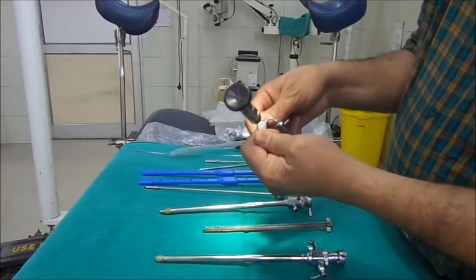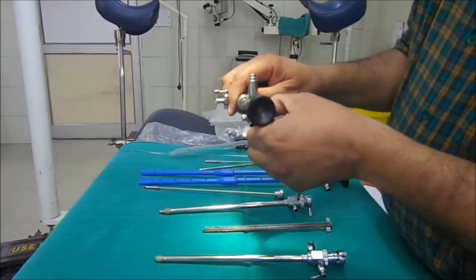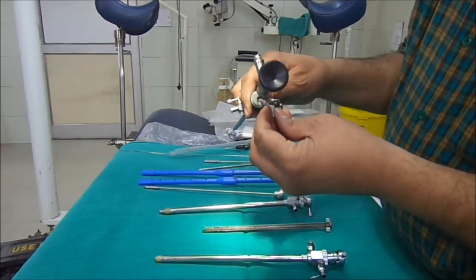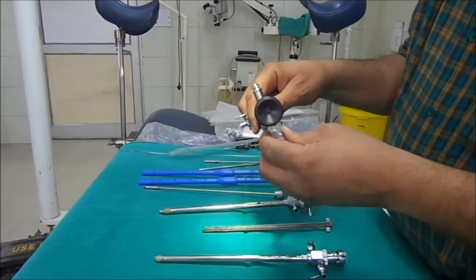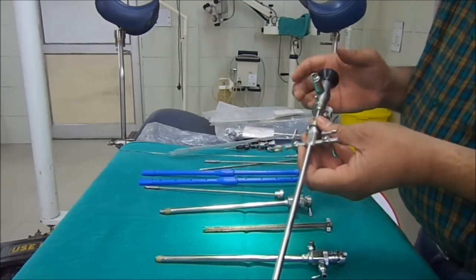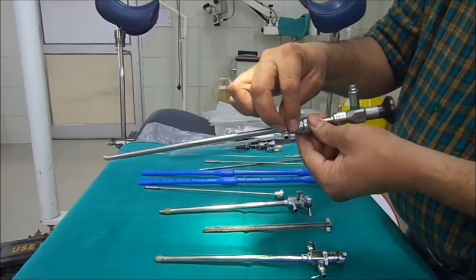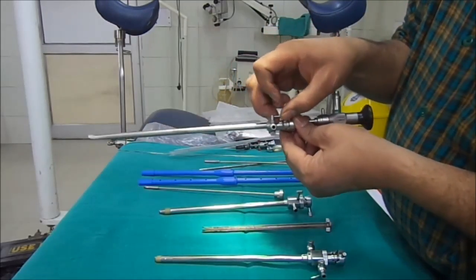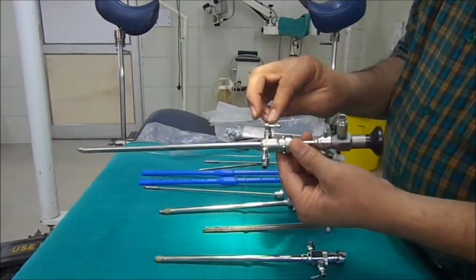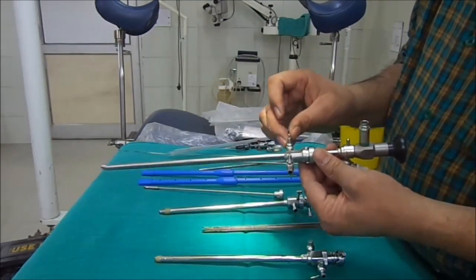You can see this is the single port telescope bridge. We may also have a two-port telescopic bridge, and through those ports various modalities of treatment like biopsy forceps and Dormia baskets can be introduced for various purposes such as taking a biopsy and removing a stone. The ports for inlet and outlet of fluid have already been demonstrated.